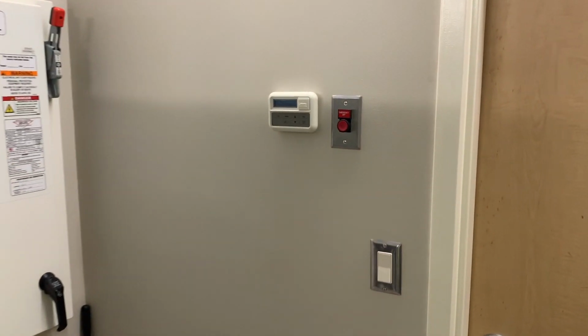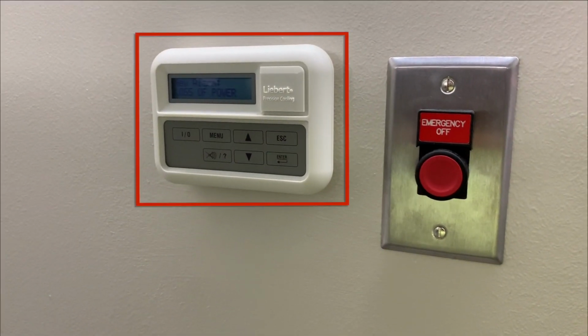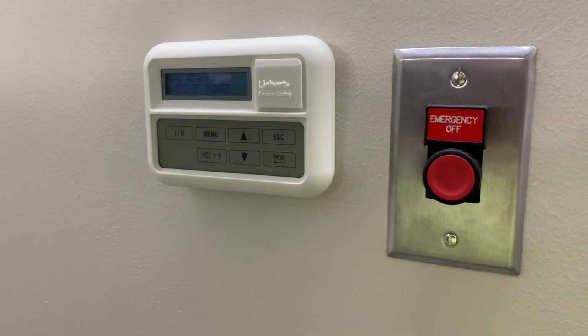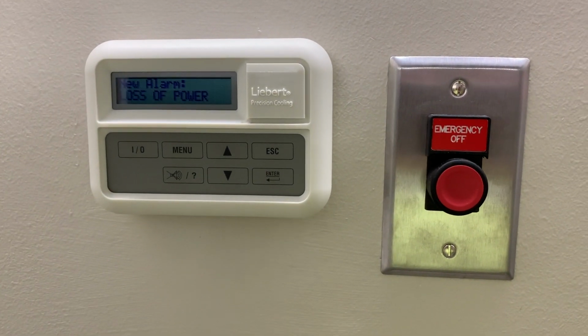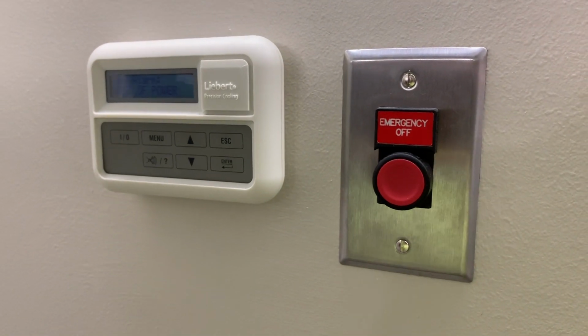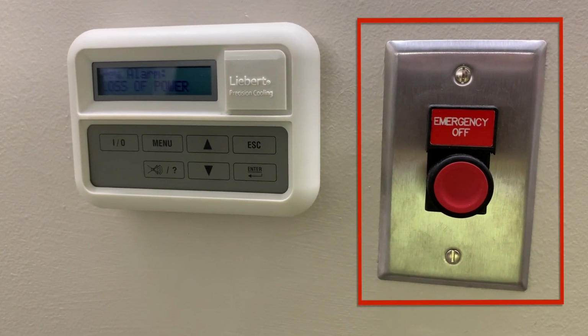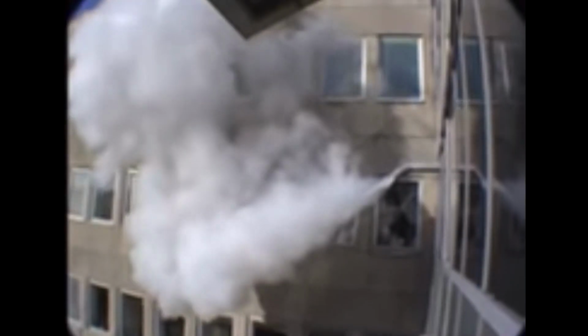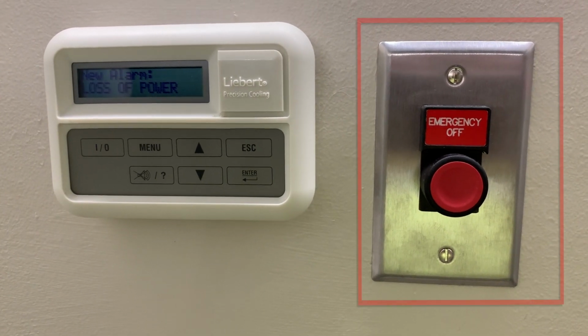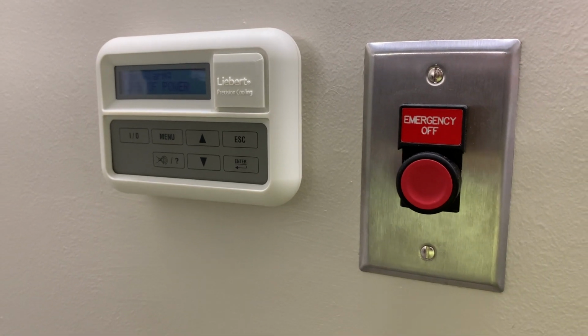To the left of the equipment room door, you will find the white Liebert control unit mounted on the wall. We do not recommend that anyone change or tamper with the settings as they are pre-programmed. This module will display new alarms and real-time statuses of the Liebert unit. To the right of the unit is the emergency off button. This is known as an e-stop, and if pressed, will cause the magnet to quench, which costs a lot of money. So, once again, CAFE Incorporated does not recommend anyone pressing this unless an appropriate emergency calls for it.